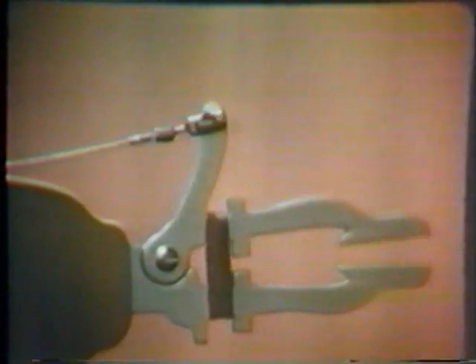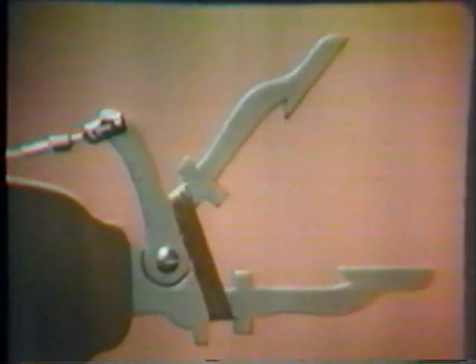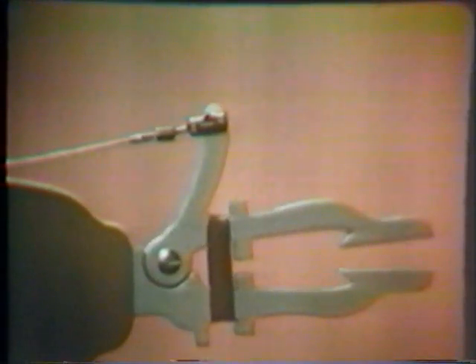with this type of terminal device, the fingers are opened by the force exerted by the amputee and closed by the rubber band seen in the illustration. The force of prehension, or grasp, is determined by the number of rubber bands, each rubber band providing approximately one pound of prehension, or pinch. With this model, we see that arm motion is used by the amputee to open the fingers of the terminal device.